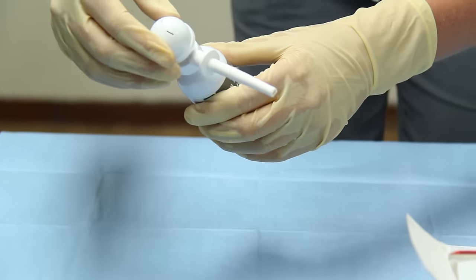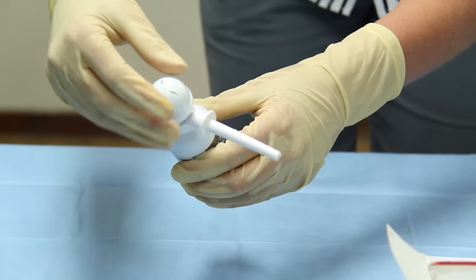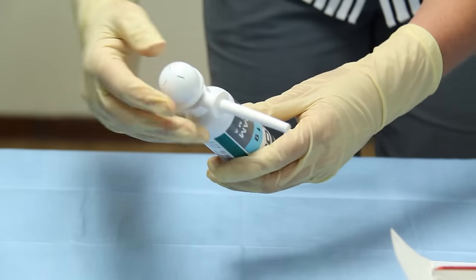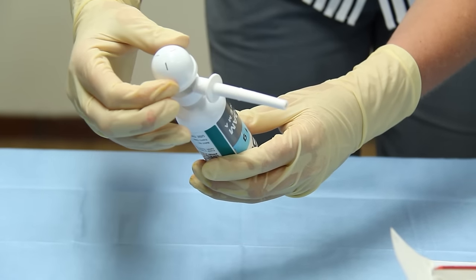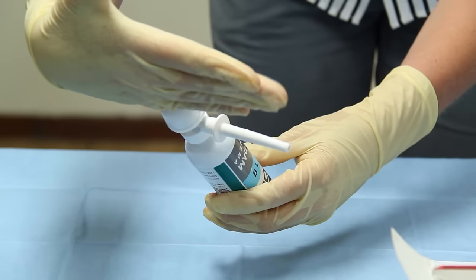Now make sure the semicircle isn't lined up to start with because you need to advise the patient to shake for 10 seconds, and then they can twist it back round so the semicircle is in line with the applicator.